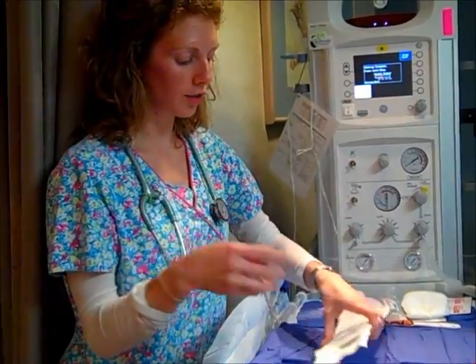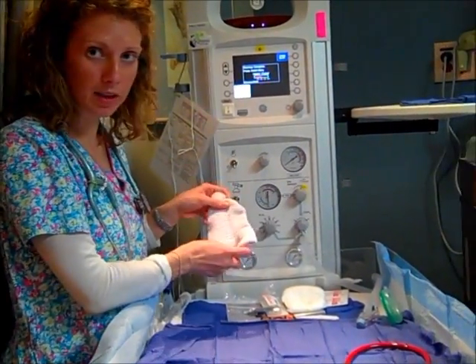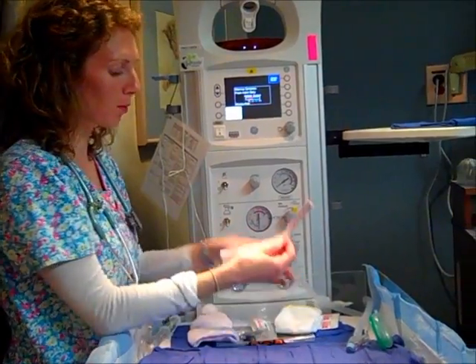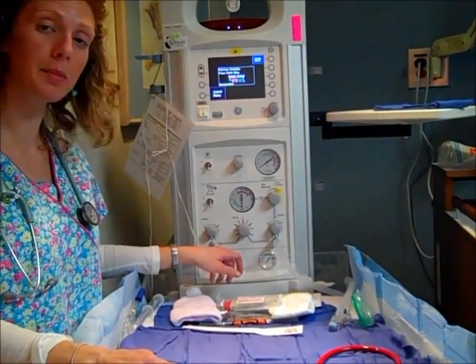So all of these warmers are stocked with various supplies like that. And then some basic things that they all have is a little hat, because babies can lose heat. There's heat that's coming off of this to keep the baby warm. We'll measure the head circumference and the length, diaper, temperature. So here's where the baby would be to stabilize.